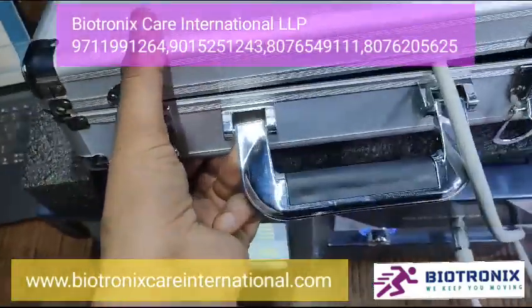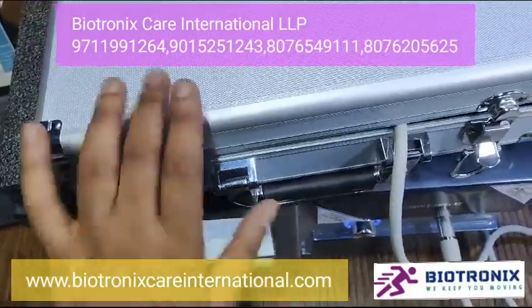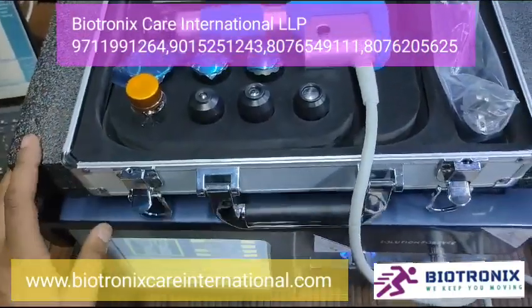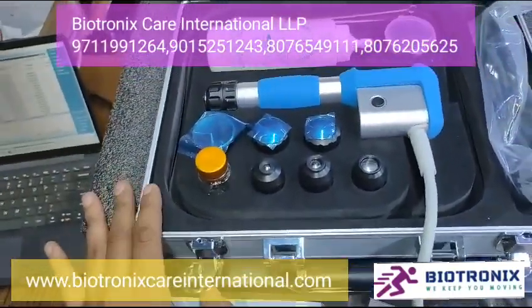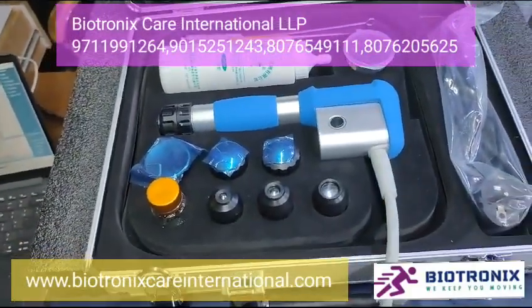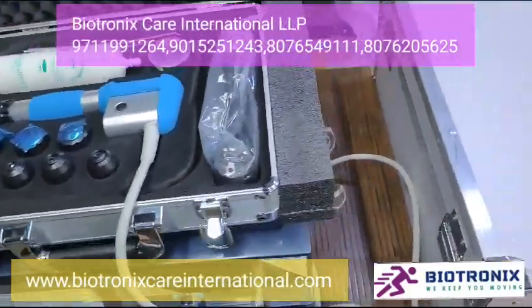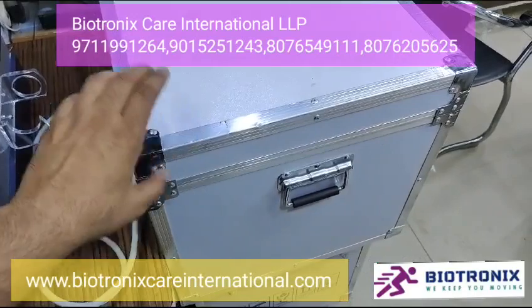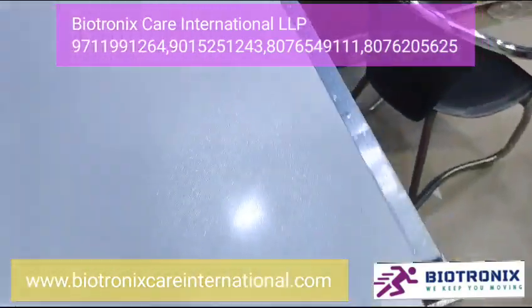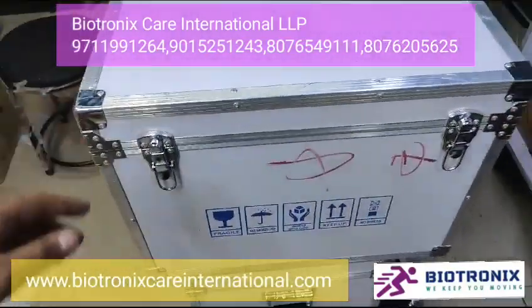The suitcase is separate. Previously we were having a simple box, but this is the new packaging we have. This is the master packing of the shockwave machine — easy transport, you can easily carry it through.